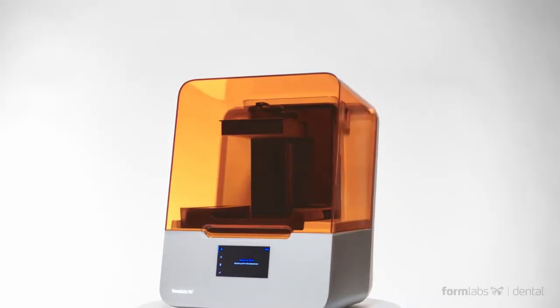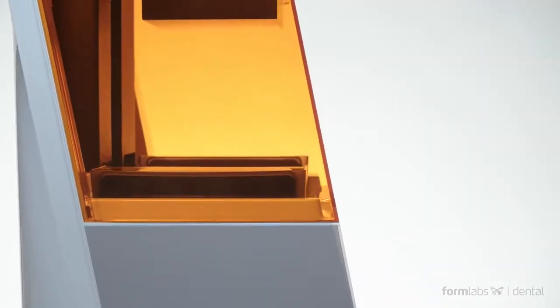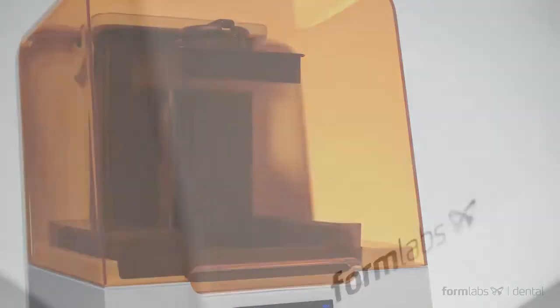Introducing the Form 3B, our first 3D printer designed specifically to meet the high demands of dental professionals.